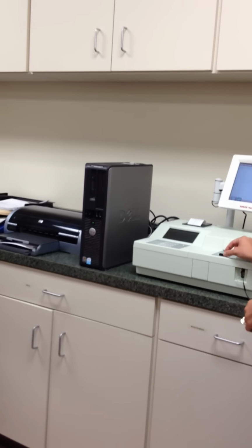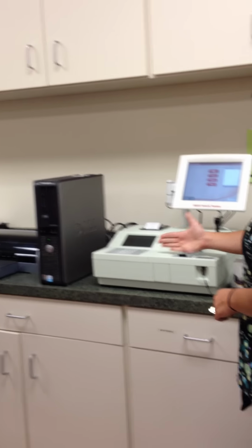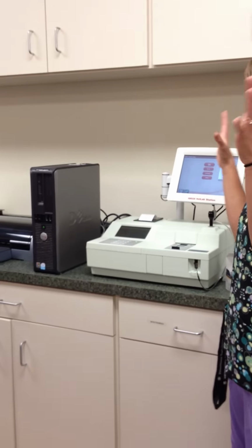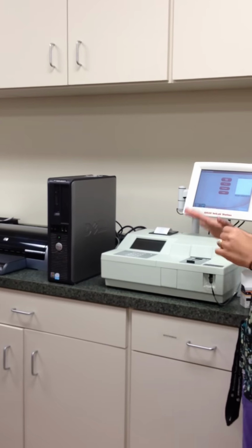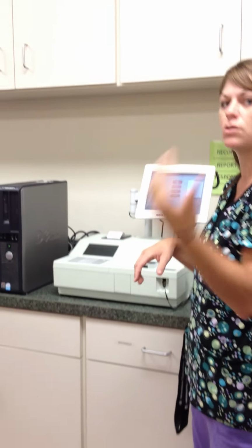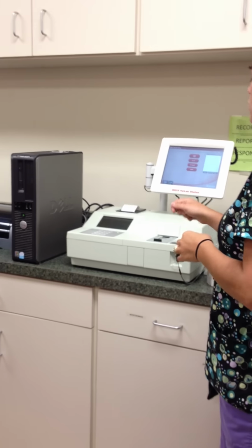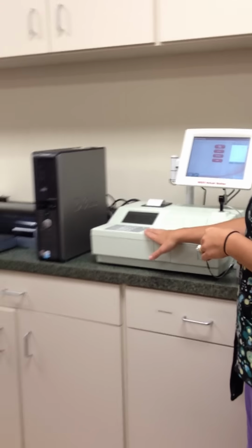Okay, we're going to take a little black handle, push it in, pull it all the way out. And when I say all the way out, make sure it's all the way out. Sometimes when this thing starts up, it'll be screaming. Check this little handle. If it's pushed in a little bit, it makes it mad. So just pull it all the way out. Okay? And if you guys heard the little rotation sound, that means it's ready for its next one. So then you can put in all of your samples or all of your codes. And once you're ready for that, then you're going to go ahead and press your enter button.